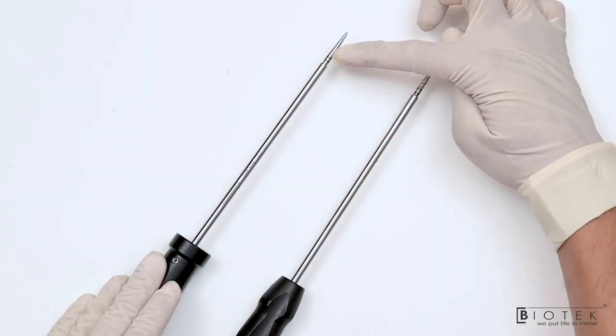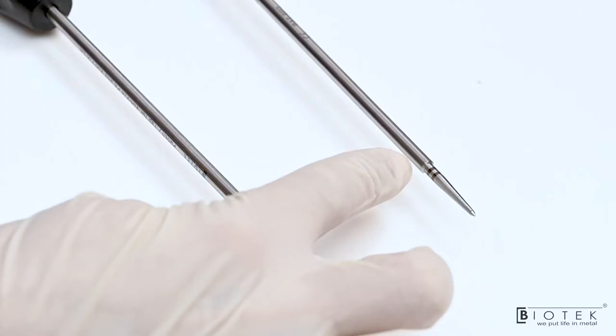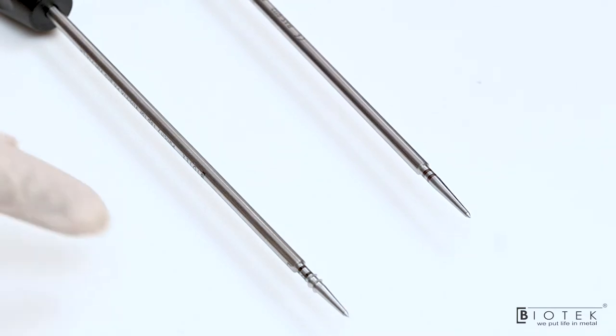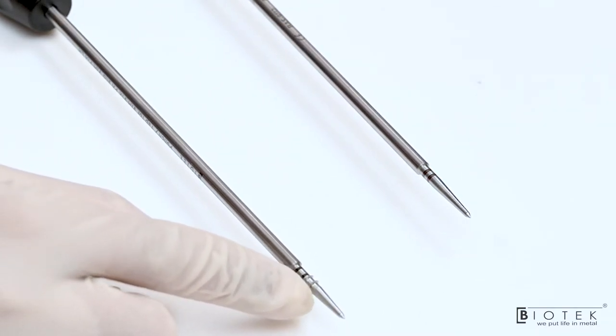There are two laser markings here. The first laser marking is for insertion of medial-row SwiveLock PK anchor and the second laser marking is used for insertion of SwiveLock LR anchor, that is lateral-row anchor. This punch tap is used when the bone is very hard to make the anchor insertion smooth.